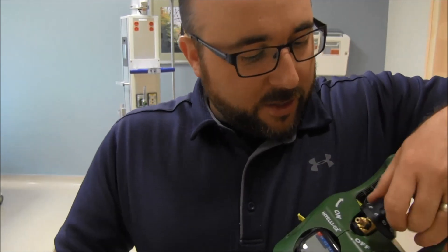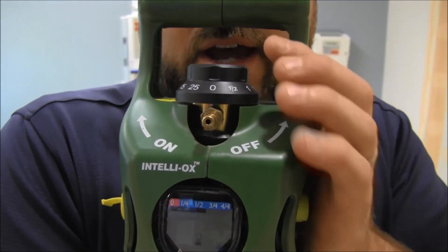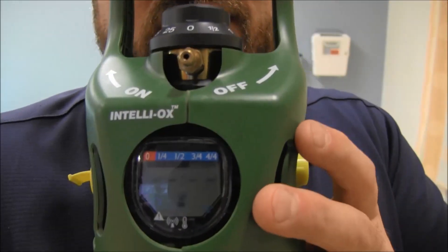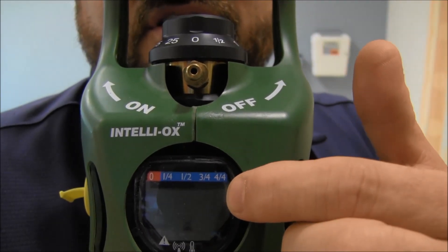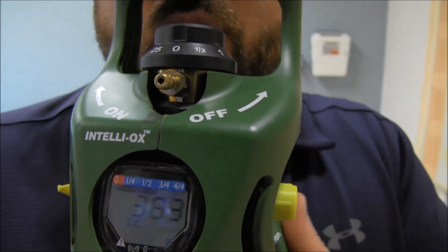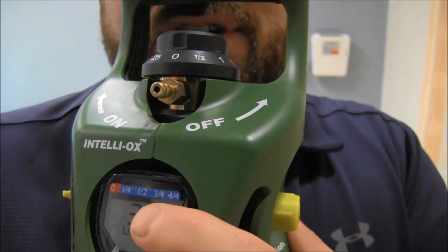If you're wondering how much oxygen you have and you're not sure that 600 is a full tank, it also gives you this little indicator at the top — just like a gas gauge. Four out of four is full, then three-quarters, one-half, one-quarter, and zero. That little gauge at the top shows you how much you have left. In this case, you're a little over half.